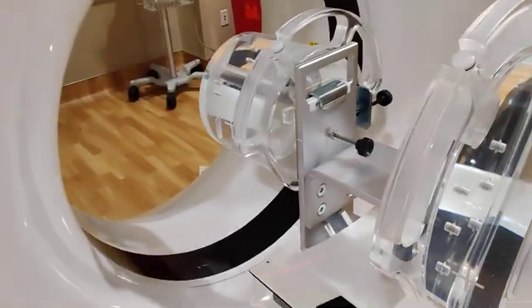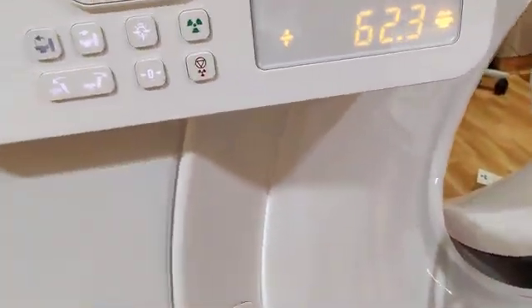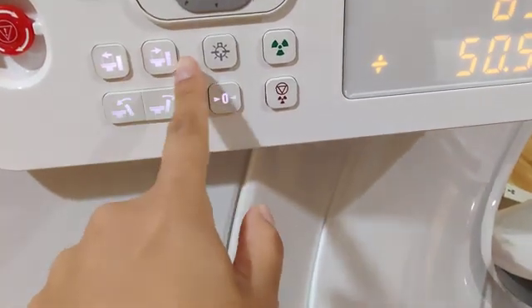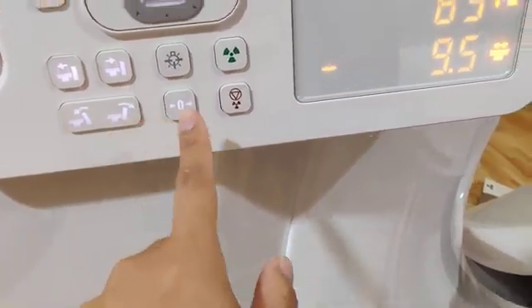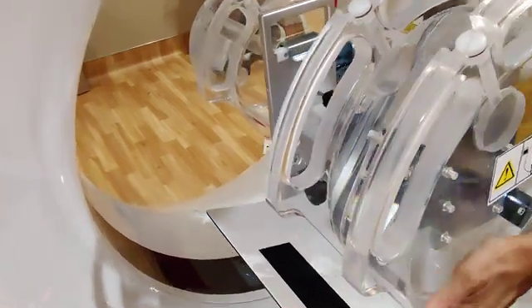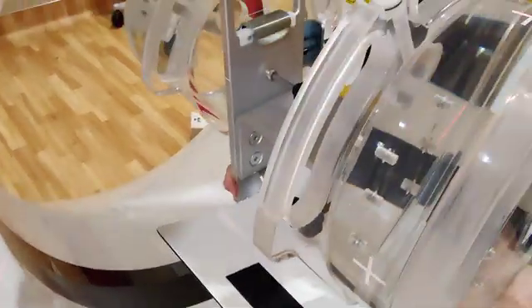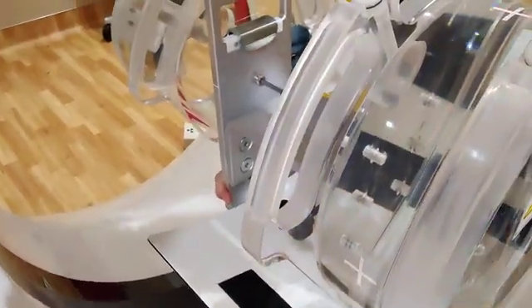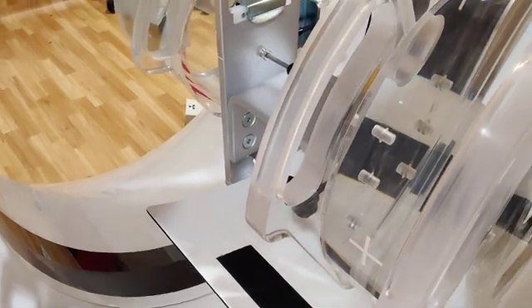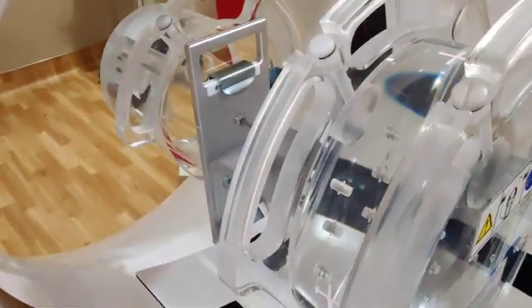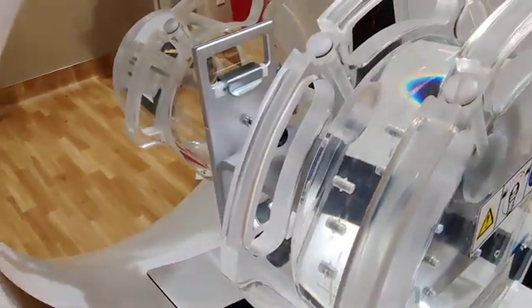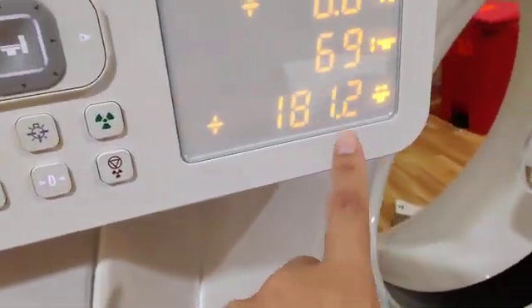This way when you hit it, it's automatically right. But I want to see something. Okay, turn. See, this is already kind of wobbly. Yeah it is, okay. Here we go, I think it's good. Let's bring it back out. I just want to see how this laser lined up.